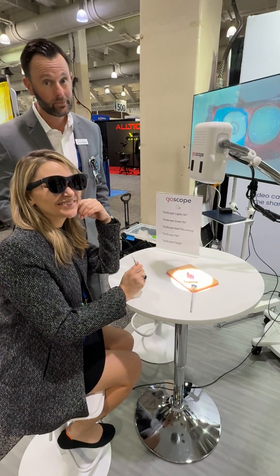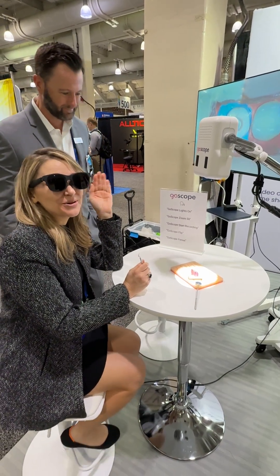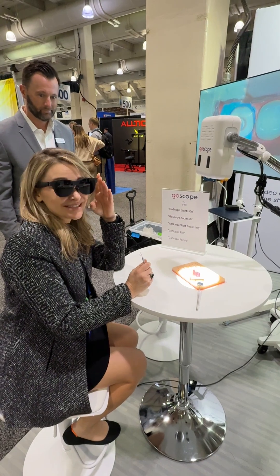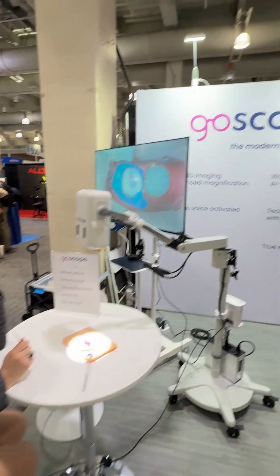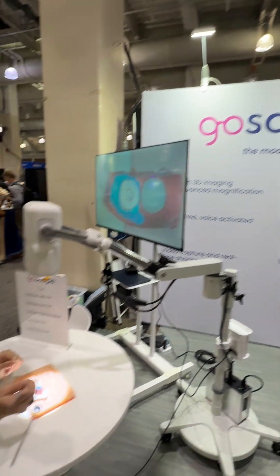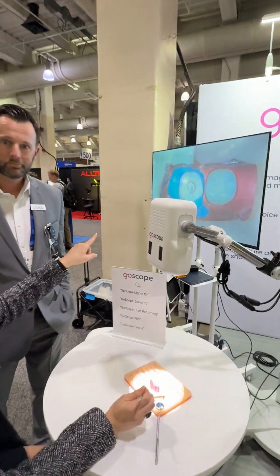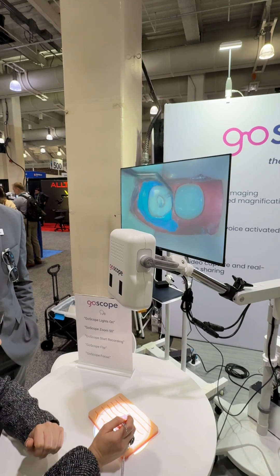Looking smooth operator. We're at the GoScope booth at AAE and they've just launched, by the way. They have these really cool glasses here. I can literally look anywhere and see exactly what's on the screen here, which is so cool.